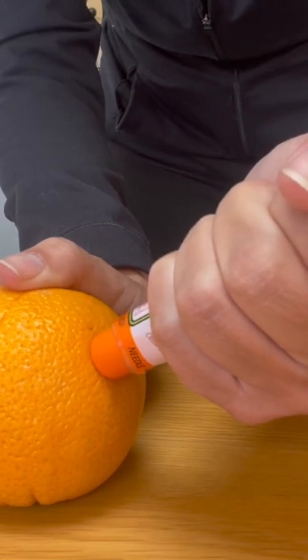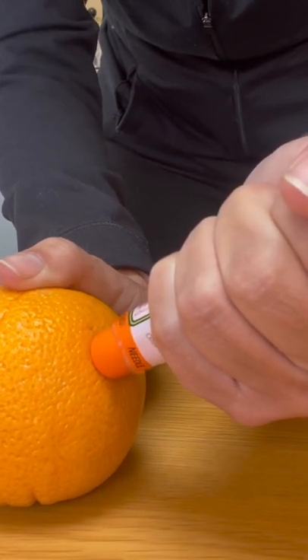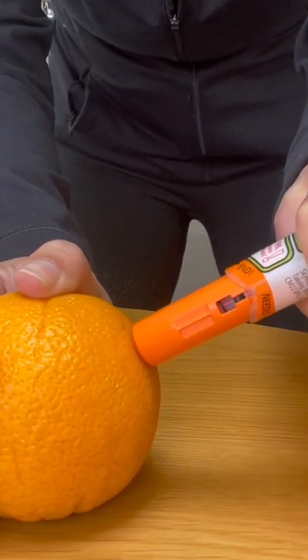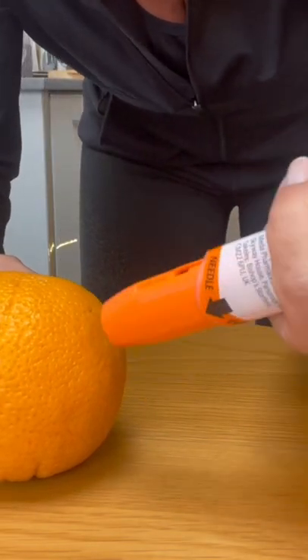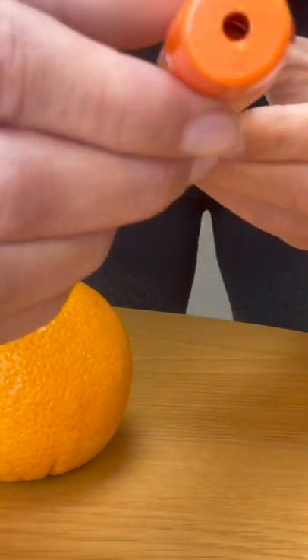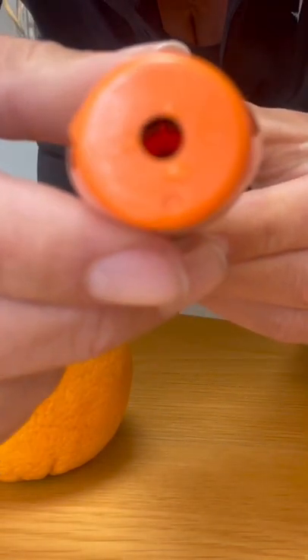When it's clicked, hold it in there for 10 seconds. You can see we can't reuse them again, and the needle — you won't be able to see it, I don't think, unless you look really clearly in there.